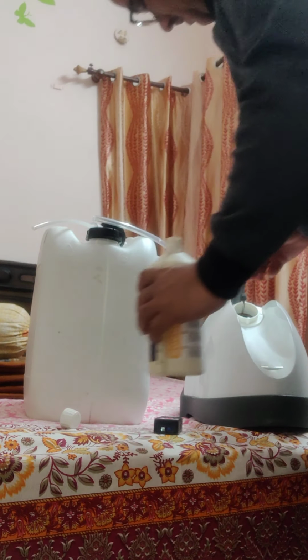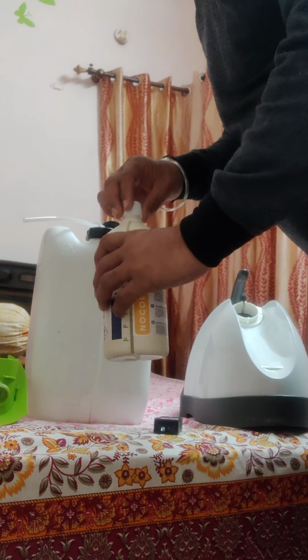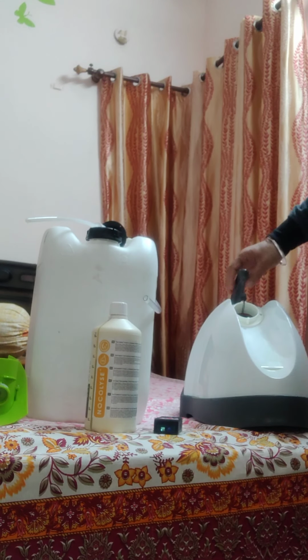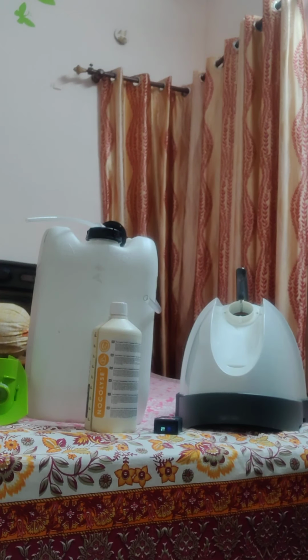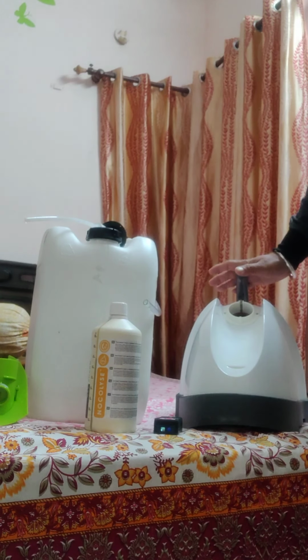So let us fix it back. Or let's not put, let us put it here. And this is very easy. Now I'll come to the major advantages of this machine.